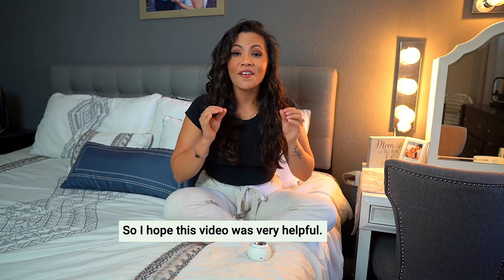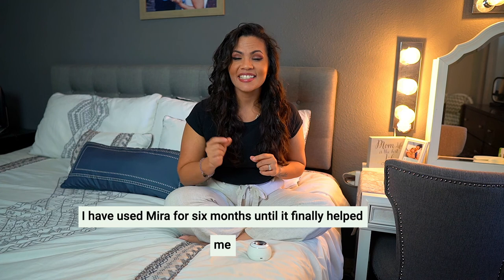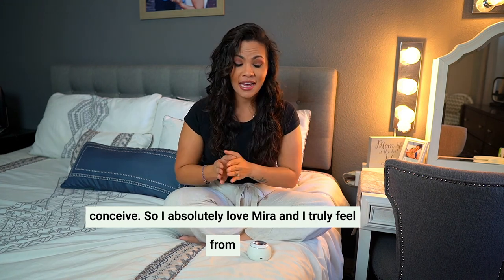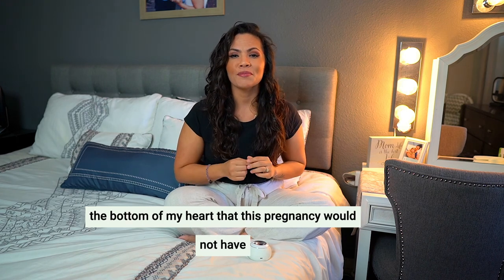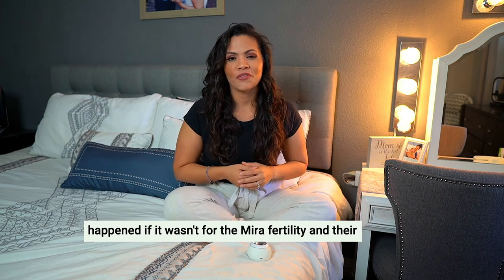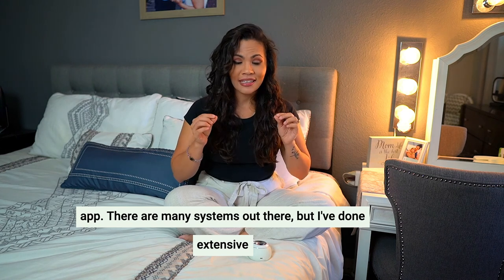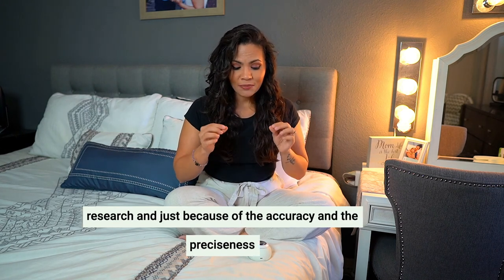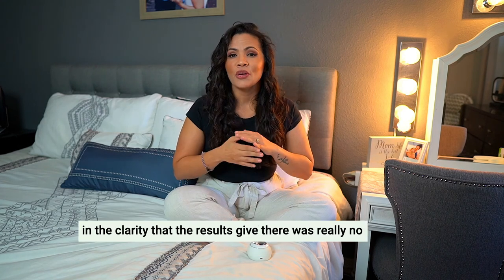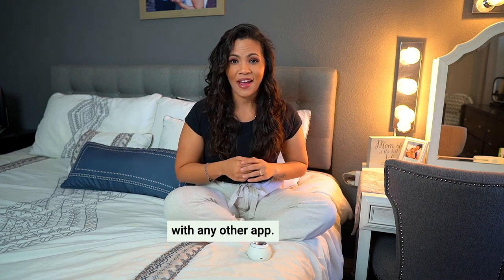I hope this video was very helpful. I used Mira for six months until it finally helped me conceive. I absolutely love Mira and I truly feel from the bottom of my heart that this pregnancy would not have happened if it wasn't for Mira Fertility and their app. There are many fertility systems out there, but I've done extensive research and just because of the accuracy, preciseness, and clarity that the results give, there was really no question for me on wanting to try any other device or app.